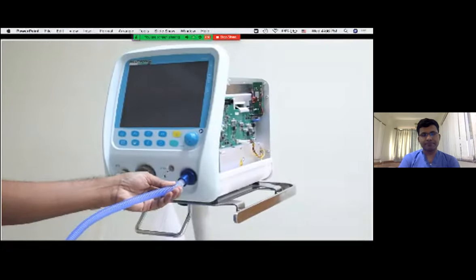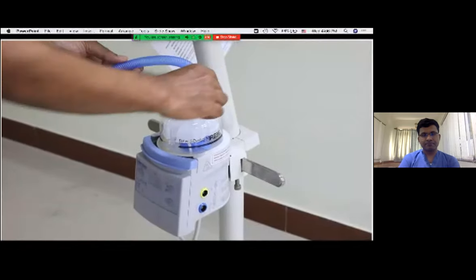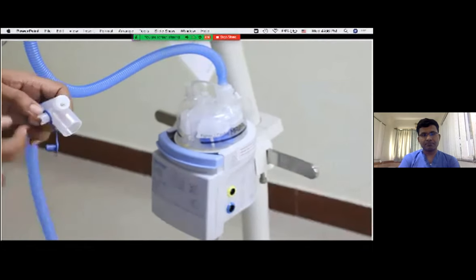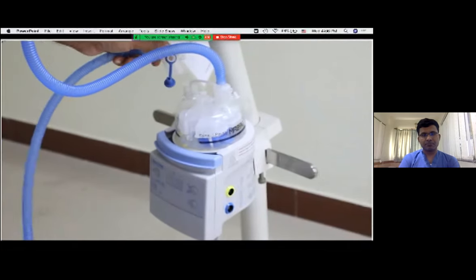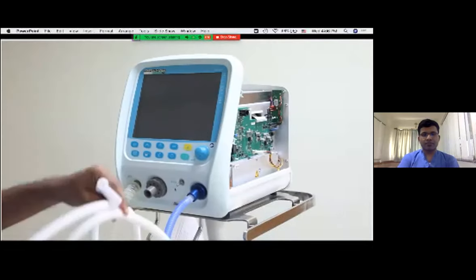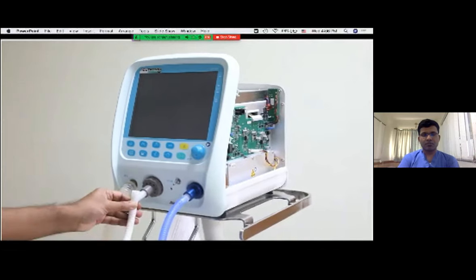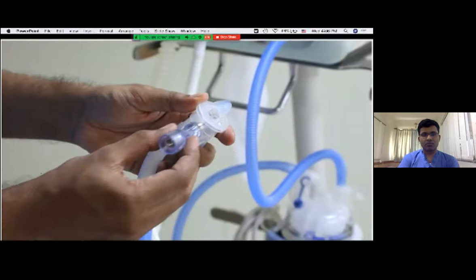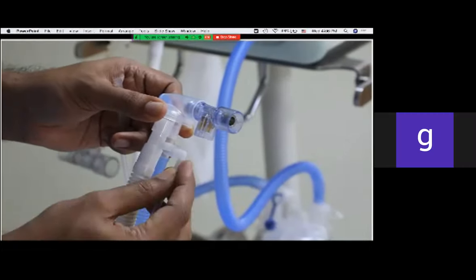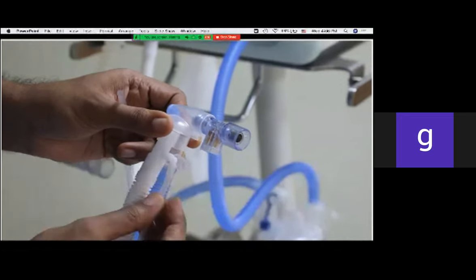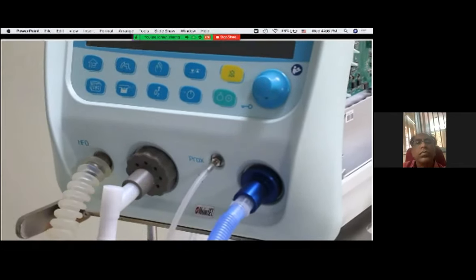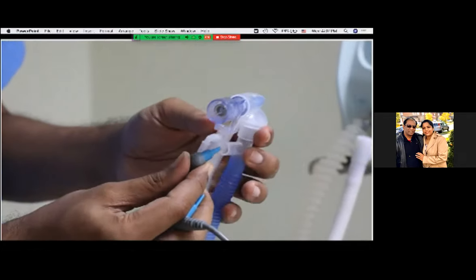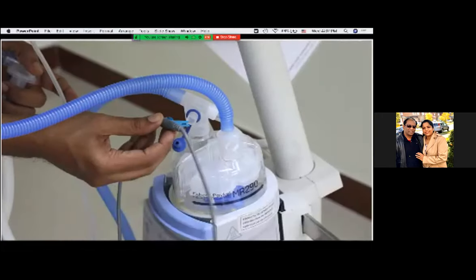The inspiratory limb has two components. The first carries inspiratory air from the ventilator to the humidifier chamber. The second part has two ports for the temperature sensor. This part will be attached to the humidifier. The expiratory limb can be attached to the expiratory port. The inspiratory and expiratory limbs are connected through the Y-piece. The flow sensor is attached to the Y-piece. The proximal line connects to the port in the expiratory limb, with the other end attached to the proximal port of the ventilator. There are two temperature sensors — the distal sensor attaches to the end of the inspiratory limb, and the proximal sensor attaches to the beginning of the inspiratory limb.